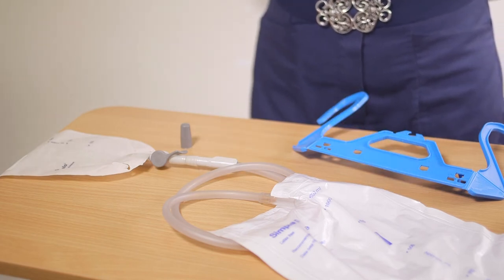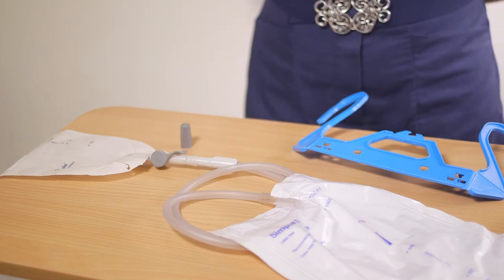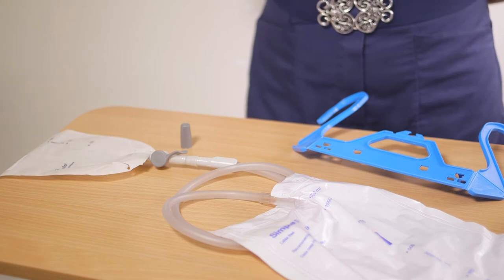The night bag can be attached to a night stand or placed inside a clean washing up bowl. Make sure this is stored on the floor below you to allow adequate drainage.